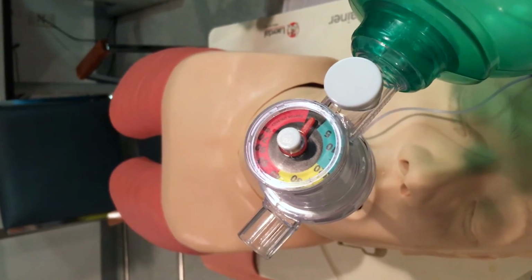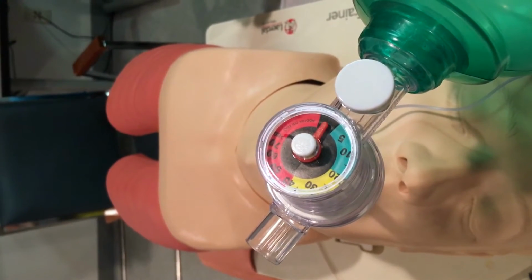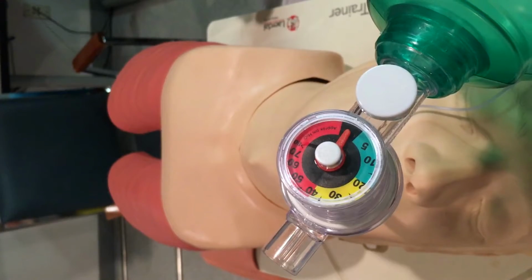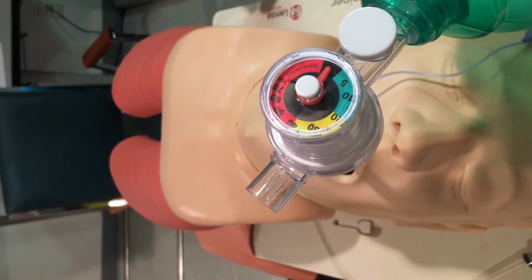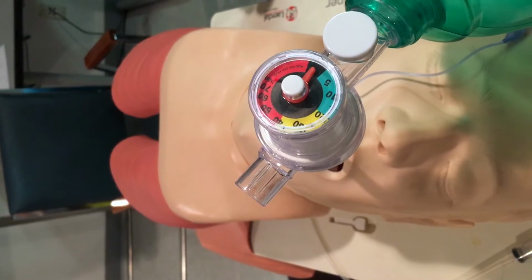So you definitely want to remove and discard the ET tube, and then make sure you establish adequate bag mask ventilation. You can use adjuncts for effective bag mask ventilation if you used them prior to attempting to intubate the patient, like an oral airway or something. So this is another thing that can happen when you think you intubated, but you actually intubated into the esophagus.